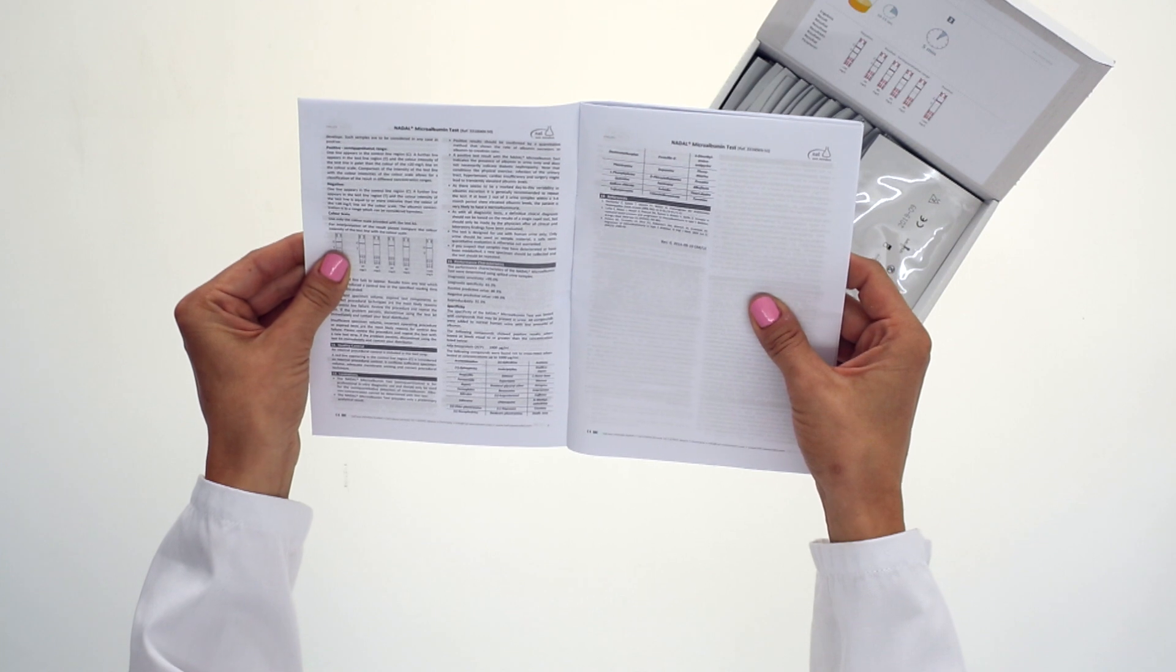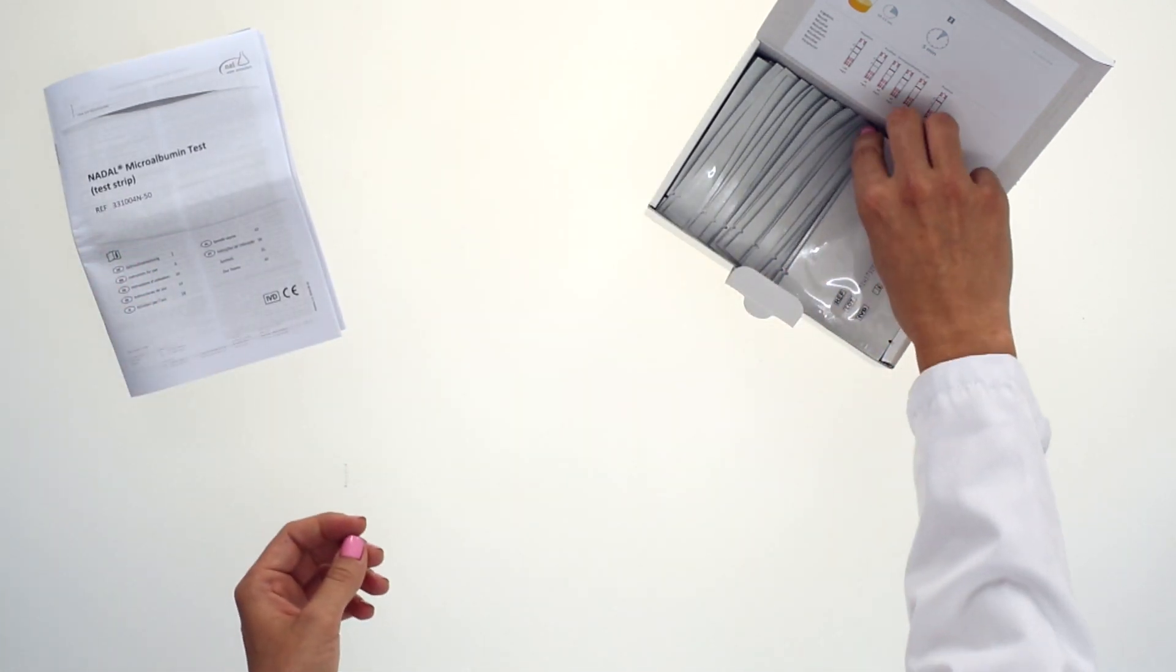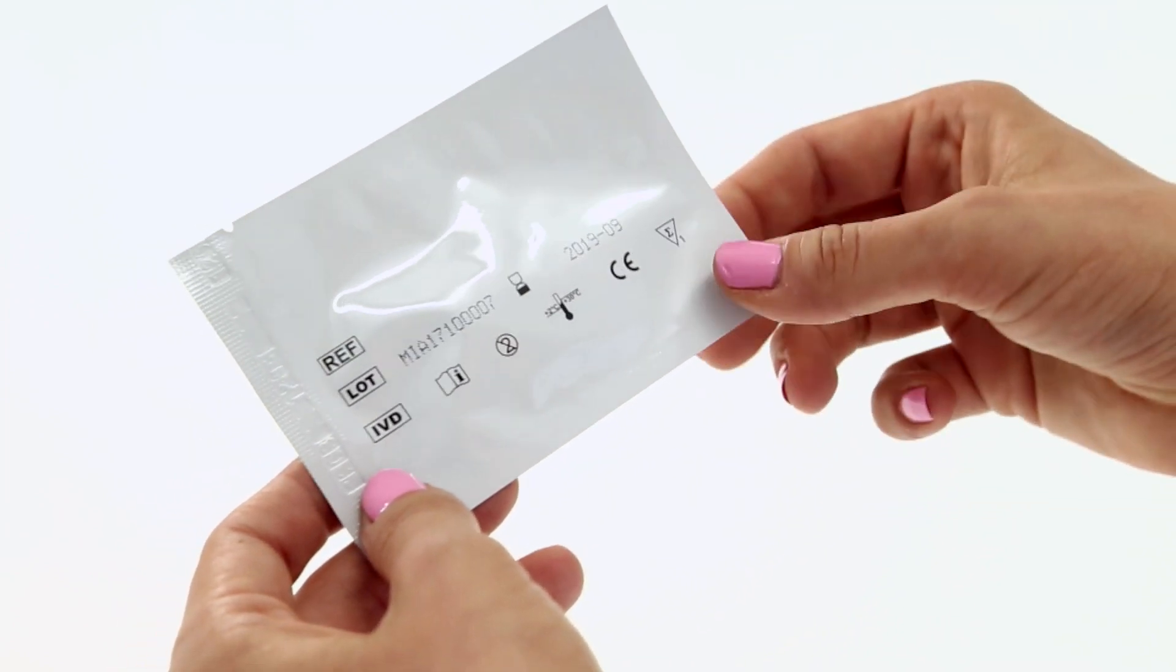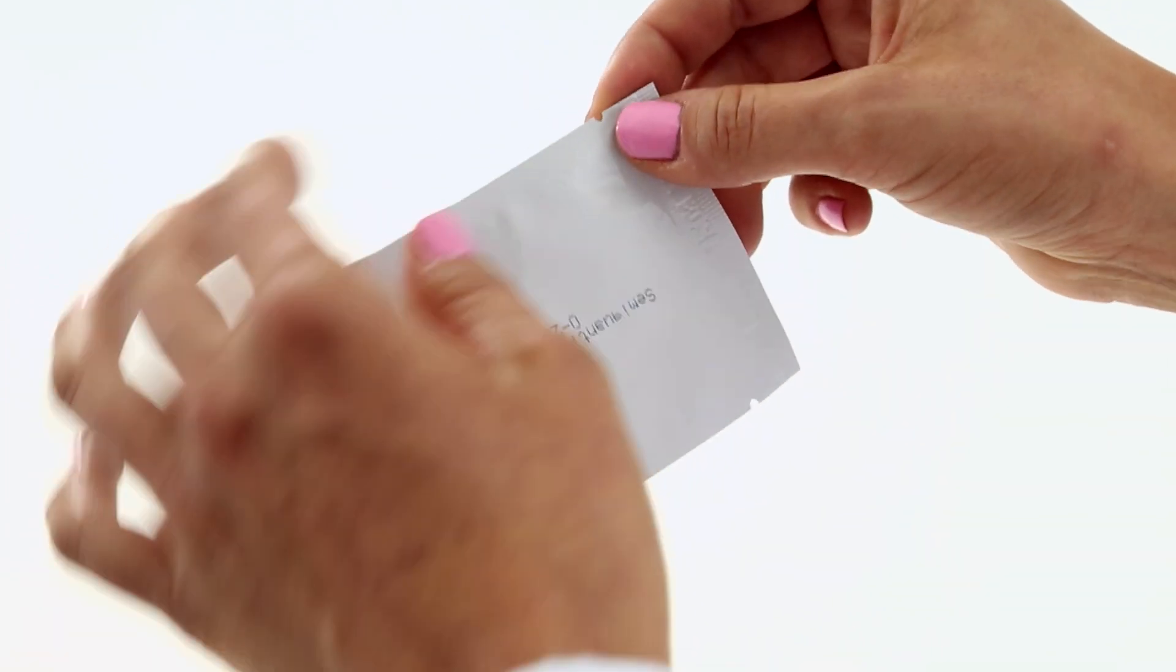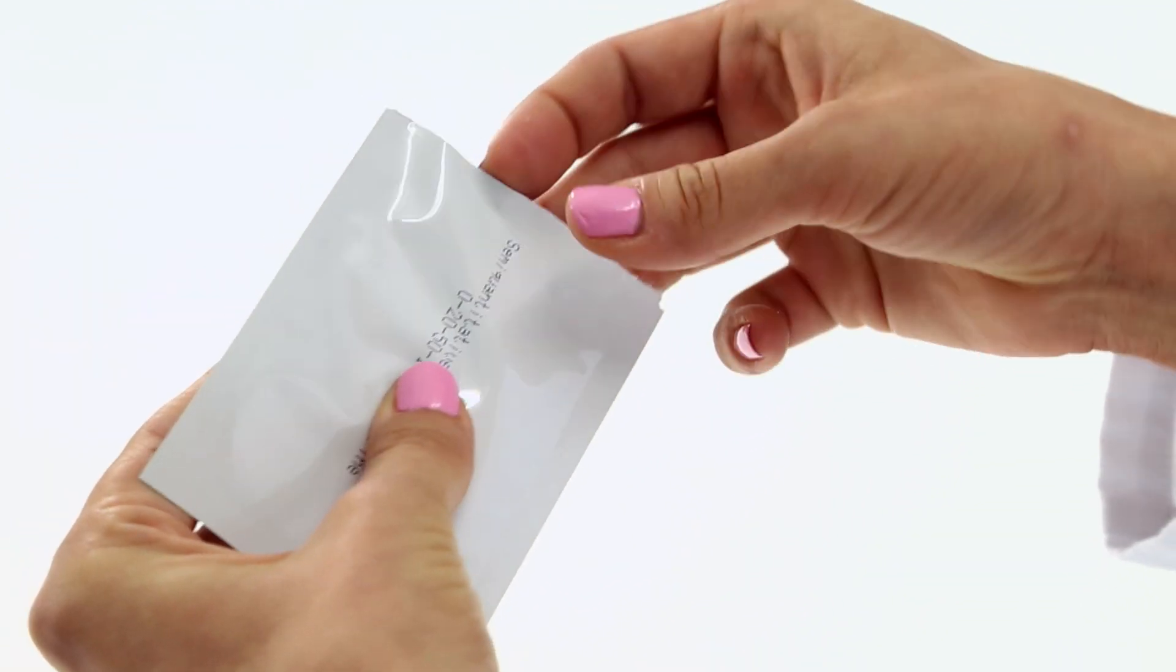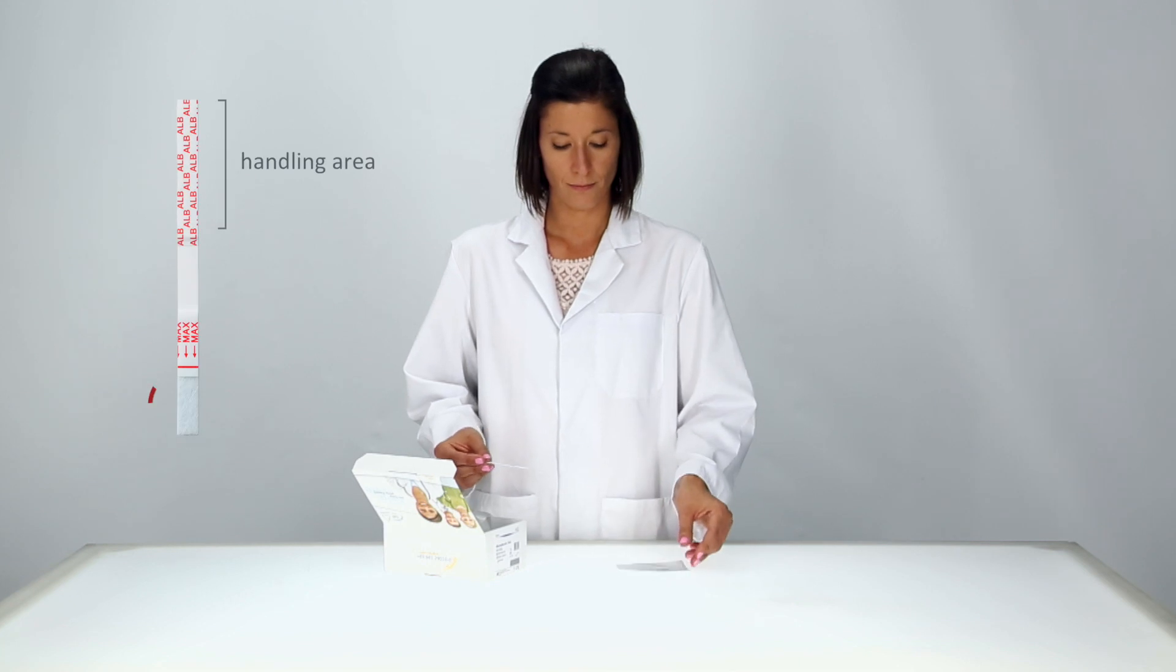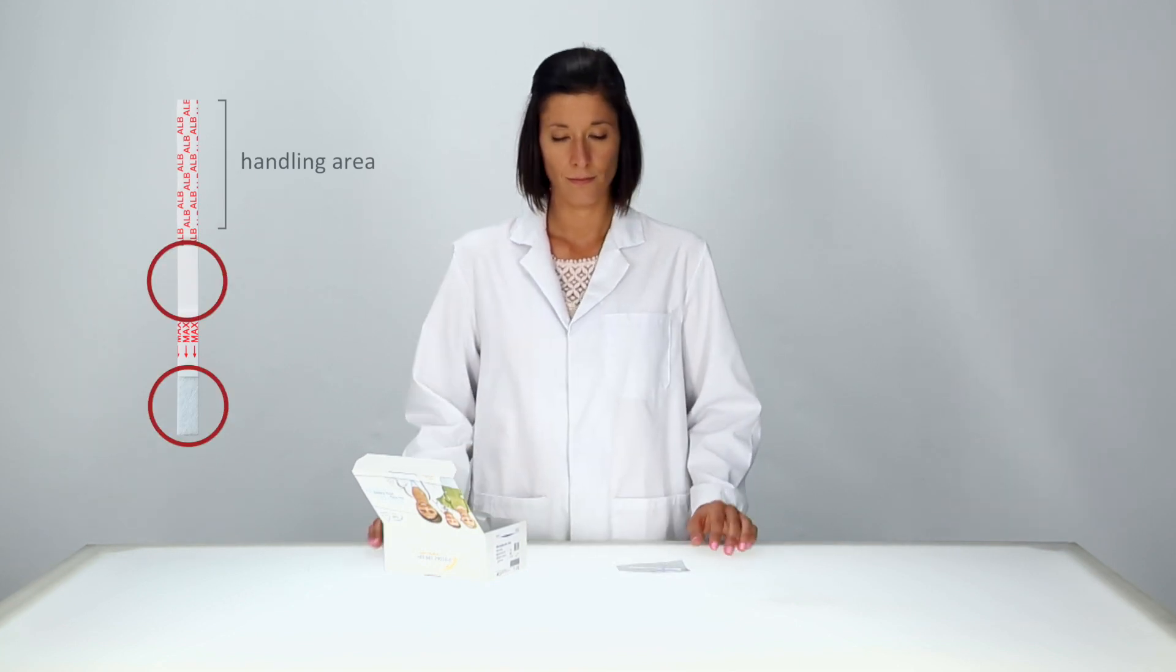Always start by reading the instructions carefully. Do not use tests with damaged pouches or beyond the stated expiry date. Use the test immediately after removing it from its pouch and don't touch the sample pad or the reaction fields.